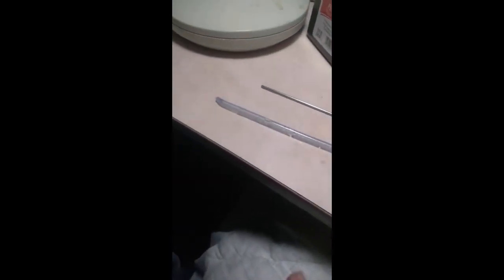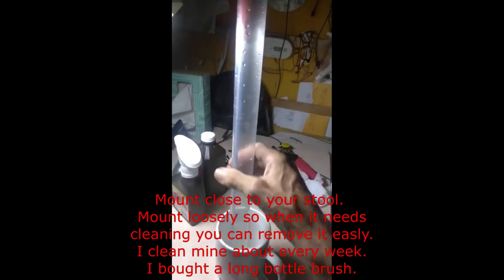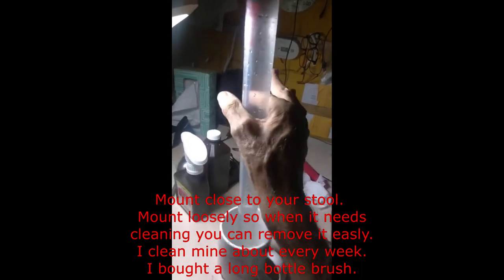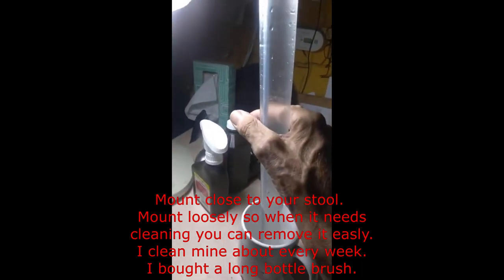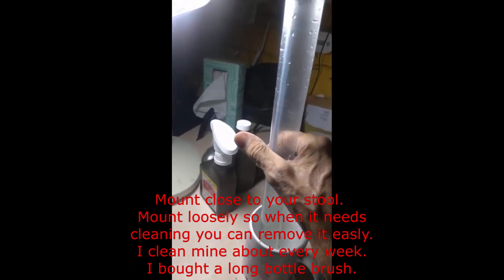So hopefully you got it. Here are the holes that come with the catheter itself — see the hole right there — and then up a little bit you'll see the hole that I put in. So here you have your tube, rod, and catheter in there. What you do is, right by your toilet, you get a little clamp and clamp it right up on the wall or wherever it's convenient for you, and that will hold it in position where you need it to be.